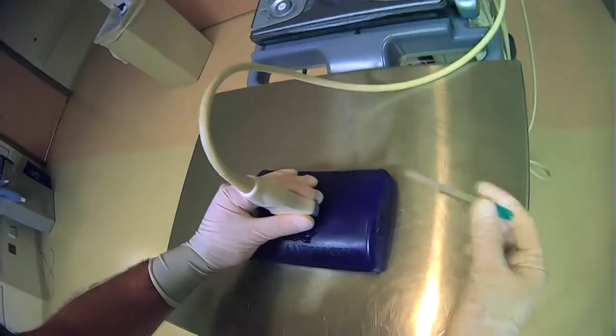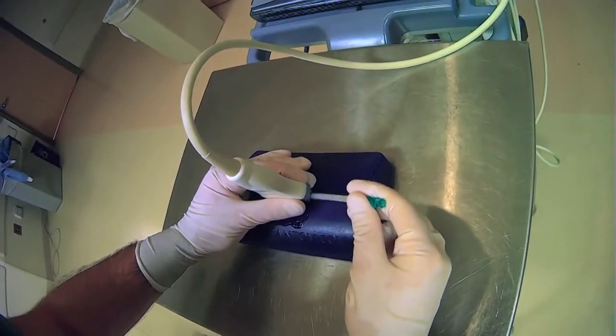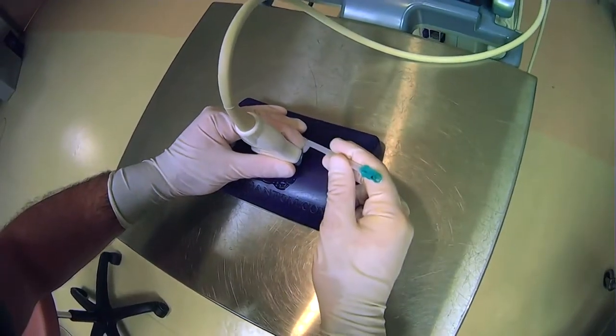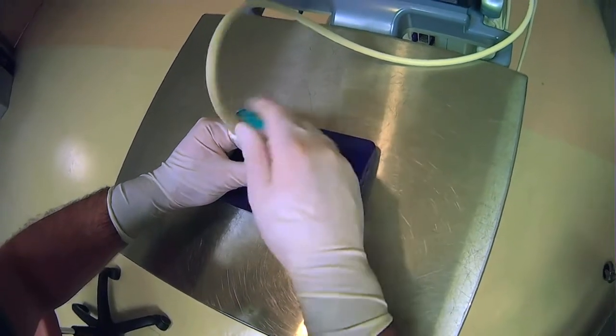And another point to add to this is because you are going to be using this side of the ultrasound probe for your actual procedures, you want to make sure that your fingers don't cover up this area.